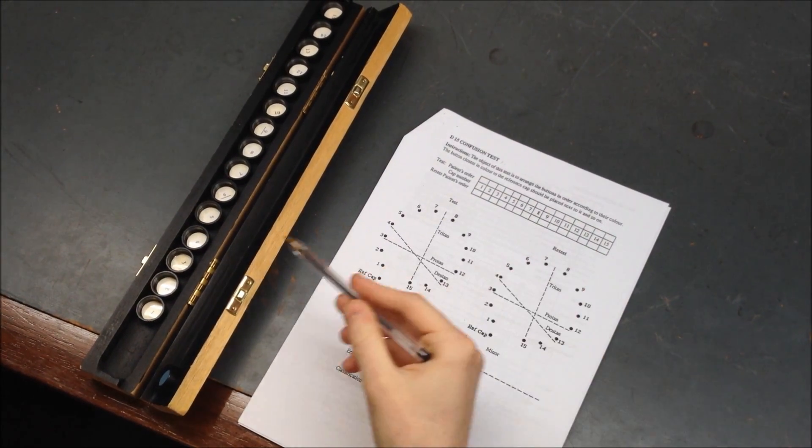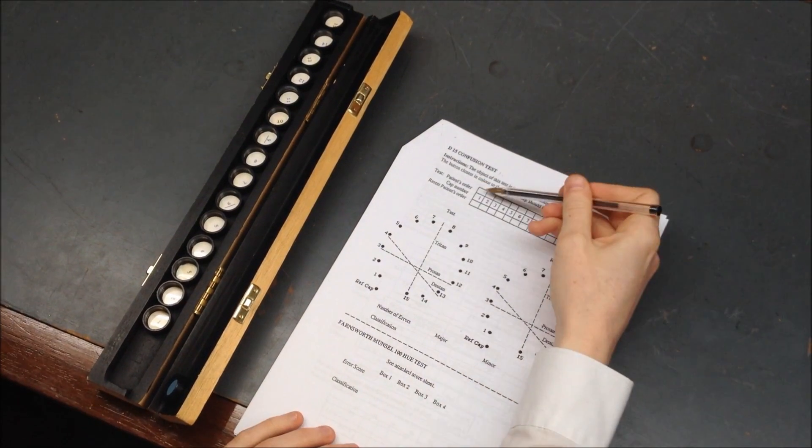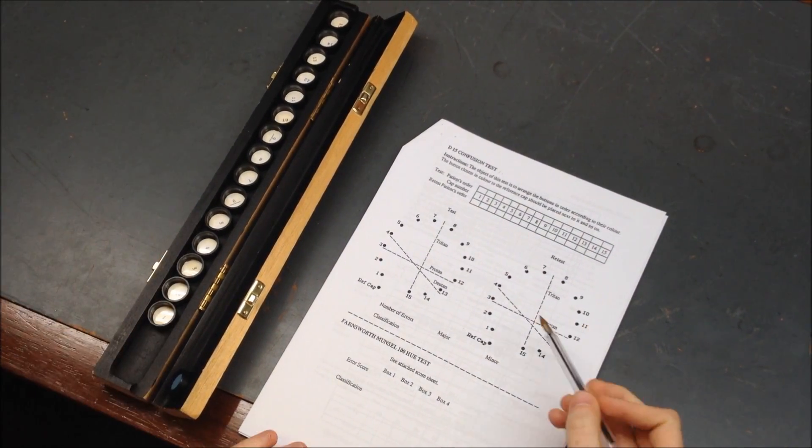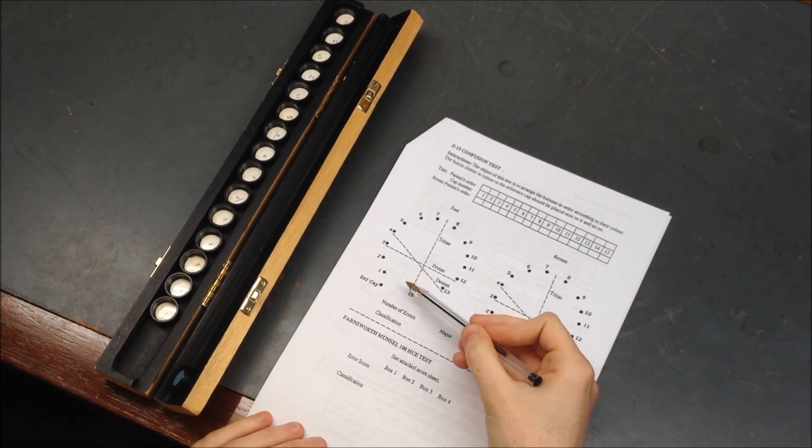This number is located underneath each color. So what we do is you write the patient's order above and you just take that from here. And then with this we then classify this using the plot here.